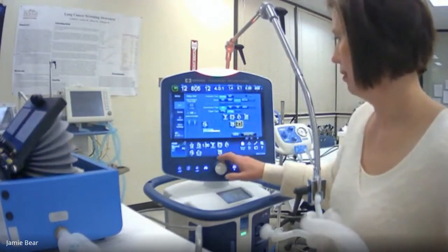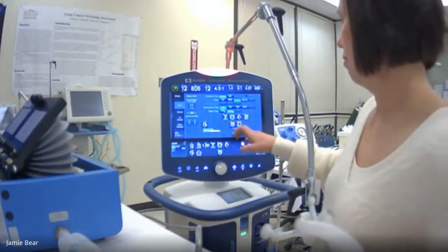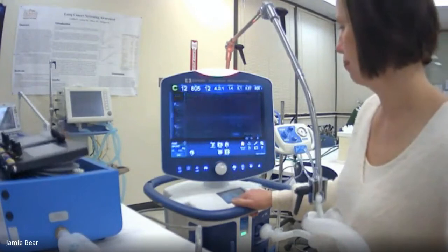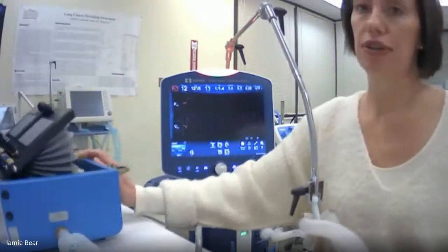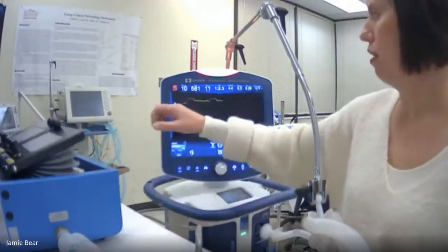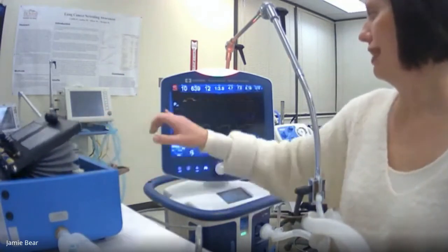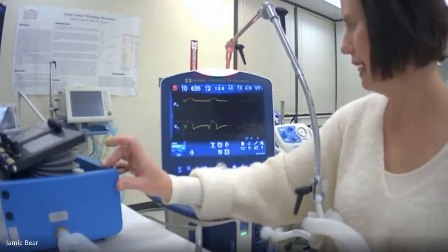So of course we'll set our PEEP to 5, and we will set our pressure support to 5 also. And once again, that's about what it's been taking for this very compliant patient. Okay, and so now you'll notice the patient isn't going to be triggered, so I'm going to do the triggering. Okay, so when I did that, they got a nice pressure-supported breath. All of these are going to have that negative deflection beforehand. The tidal volume, they're getting about 9.5 mils per kilo spontaneously.